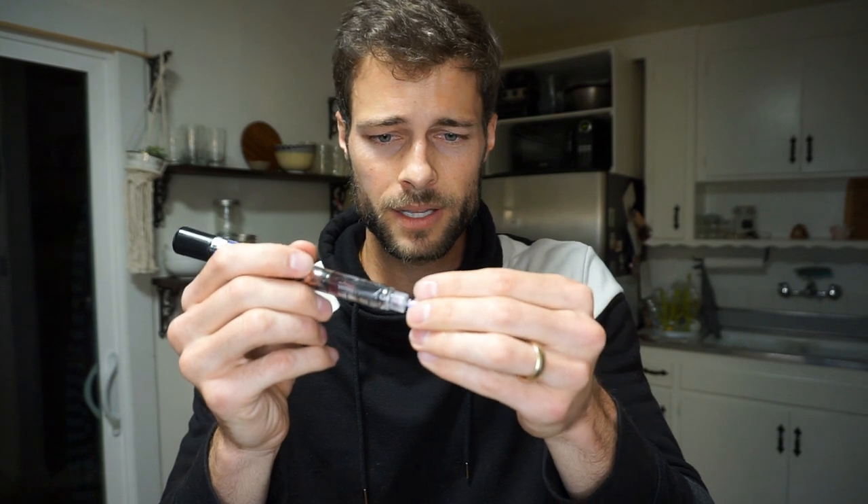What I can do now is take the needle off, or give an injection if I was ready to give a bolus. I am not — I was doing this so I could wake up tomorrow morning with an InPen ready to go. Don't stab yourself putting the cap back on — there we go. What's really cool is you can put the cap on with the needle already attached. Important: go into your app and document those prime units as prime doses, not actual doses. Otherwise it's gonna think you have 10 units on board — you don't want that.